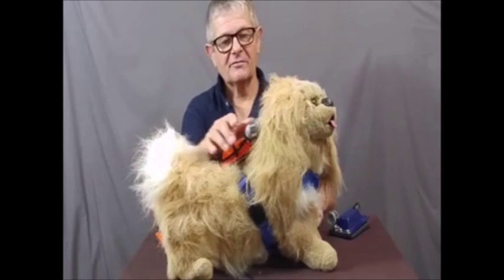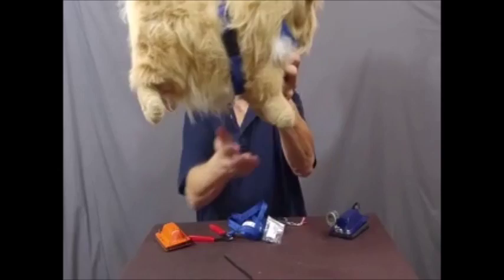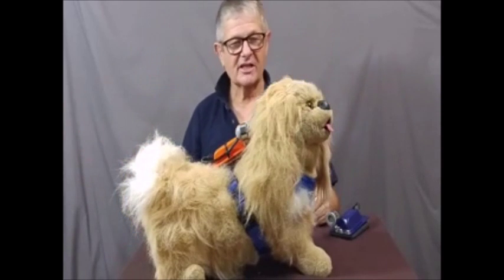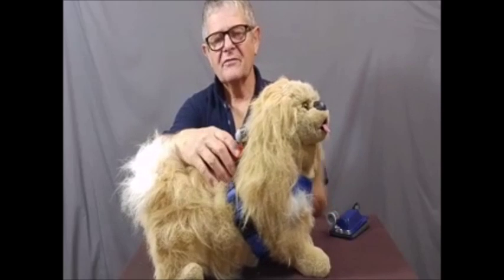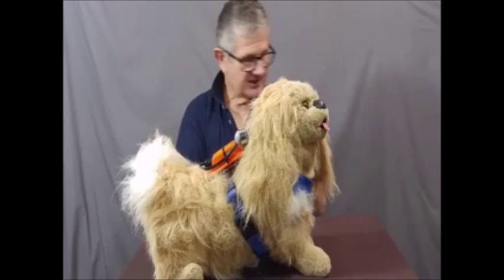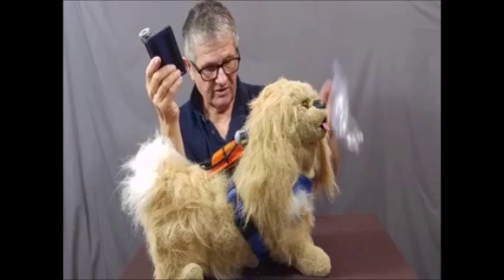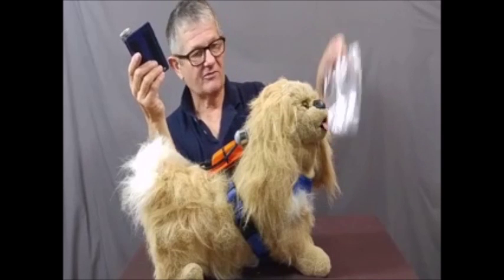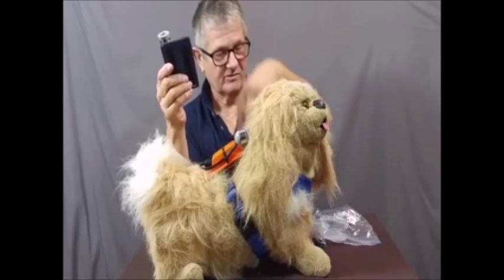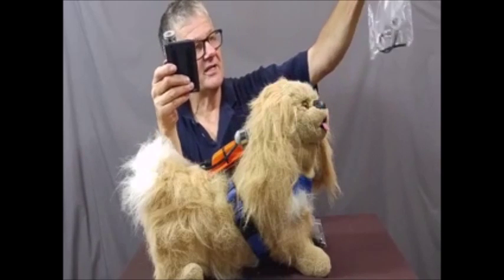If you've seen the Charlie before, there's a little pod that sits up front. That's still used for certain dogs, but for dogs with stubby legs who would drag the pod on the ground, we have this one-piece Charlie. The stuffed dog here is supposed to be a Shih Tzu. The one-piece has an arm attached and is available as a kit. If you already have a blind sight Charlie we'll give you the kit — the quick battery change kit, which involves replacing some screws, and the sidearm kit with a short cable.